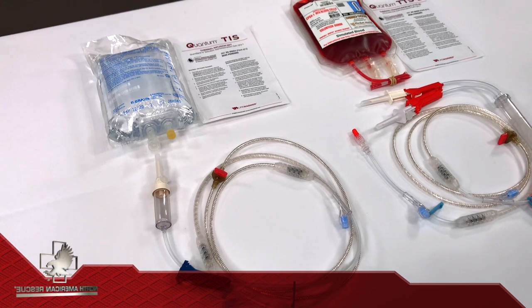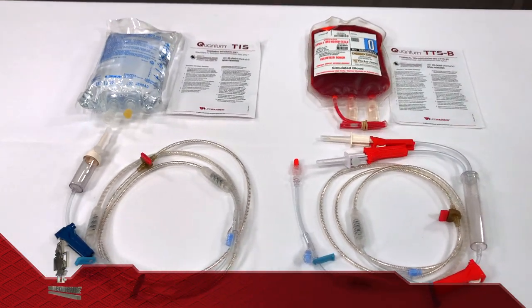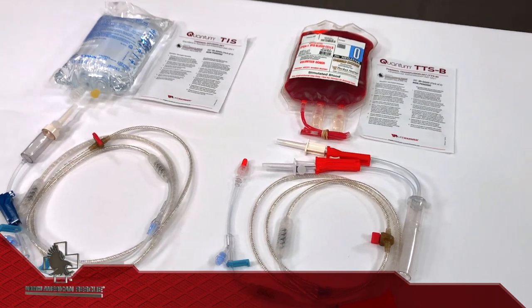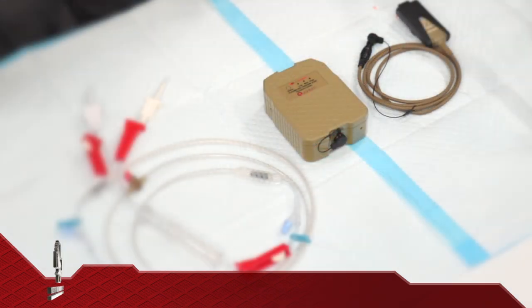Due to similarities for the setup of the TTSB and the Thermal Infusion Set, or TIS, we will focus this demonstration on the TTSB in order to deliver blood product.